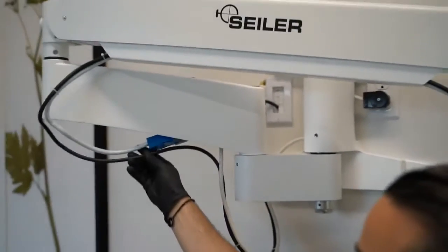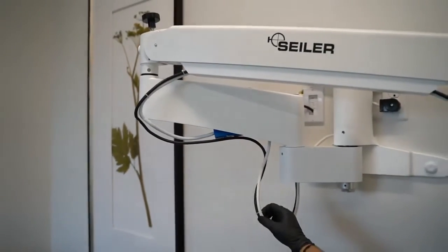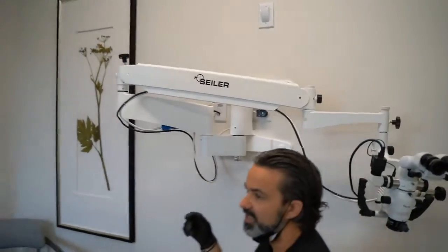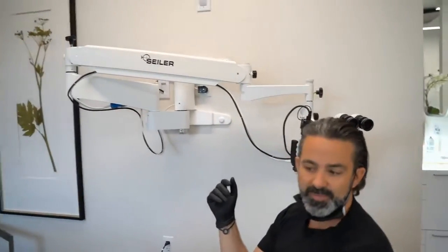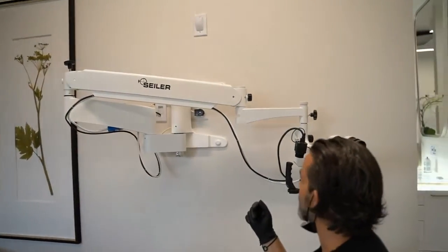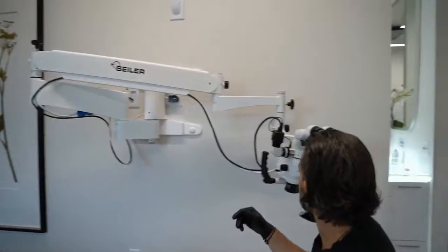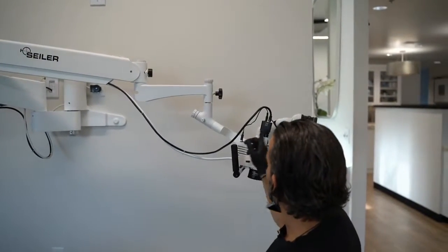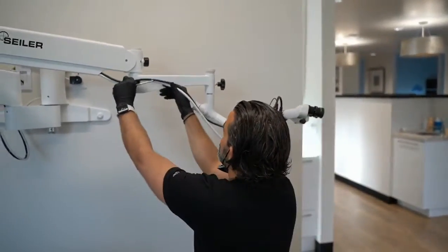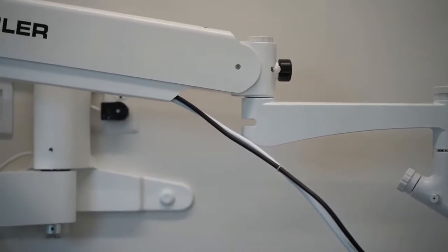Now there's actually a cover here that this is supposed to go in, but when they installed it, this cord is short, so I'm leaving this out intentionally just for my video documentation cables. If we walk into another room, you wouldn't see that it's configured like this, and they're going to come back and replace this cord for me to make it longer so I can tuck this stuff back in. That kind of drives me nuts. Getting cords out, if you do this business over here with videos, it's really hard not to, although this will actually tuck up in this arm and just come out here. So that's how that works.